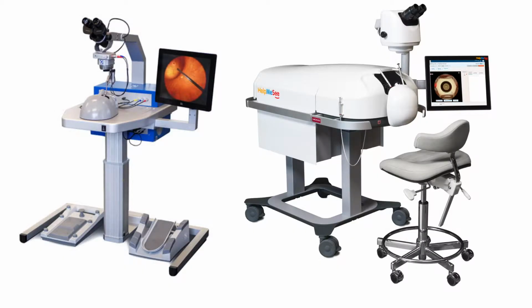It is apparent that surgical simulators benefit ophthalmology residents and ultimately patients. However, the cost of these simulators is prohibitive to most ophthalmology departments in developing nations. Our objective was to create a useful ophthalmic surgical simulator for fine motor skills training at a cost that is affordable to any residency training program.